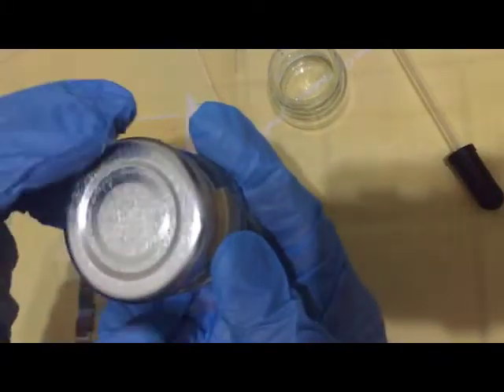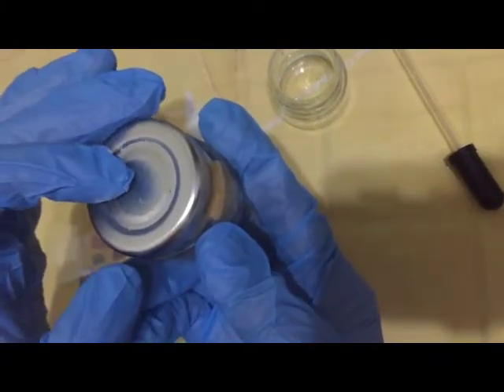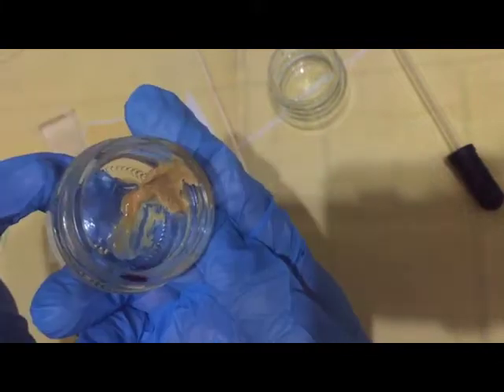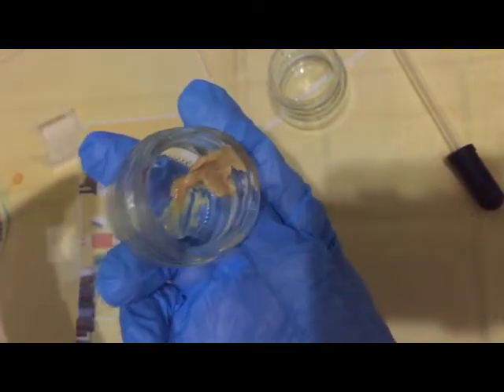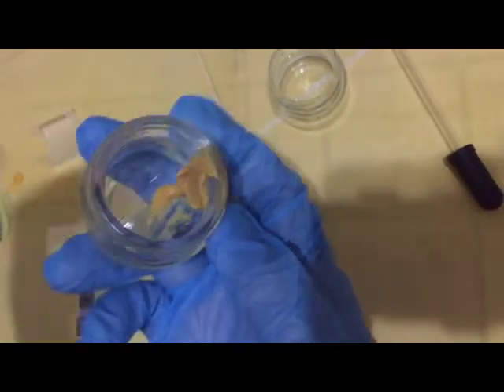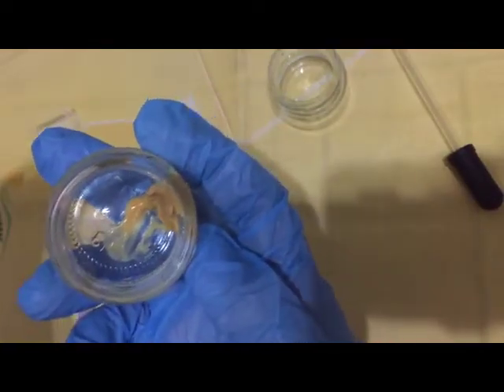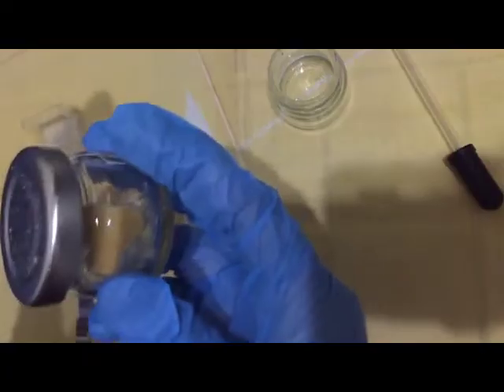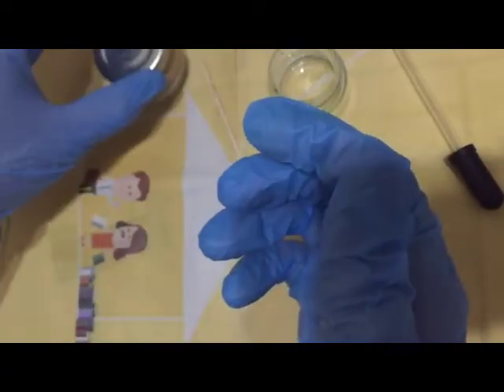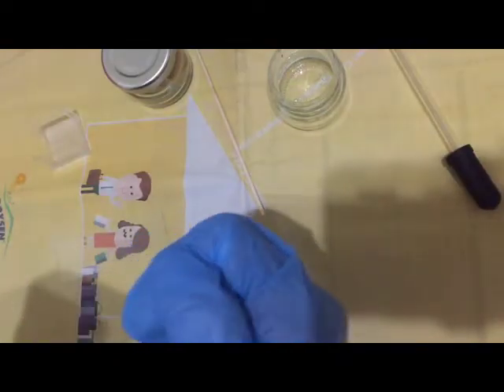You'd want to use masks. Please take note this is just for demo purposes so I'm just using peanut butter as a proxy so don't be grossed out too much. But please make sure that the container you're going to use is sealed and tamper proof and properly labeled.